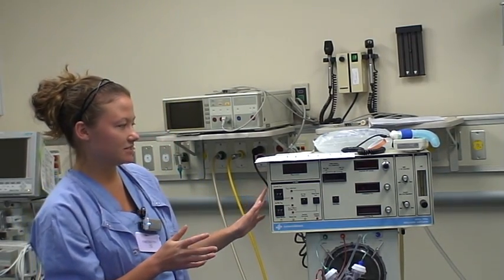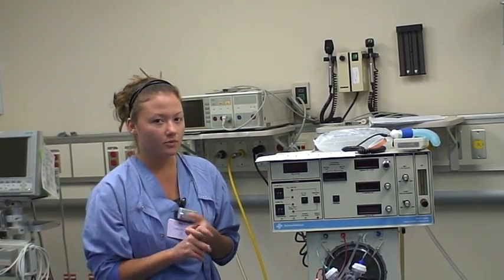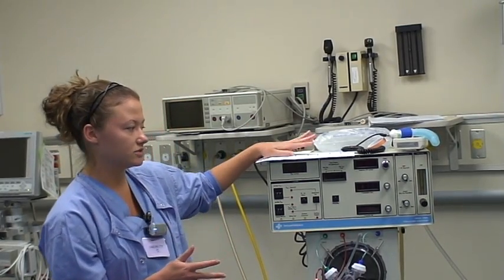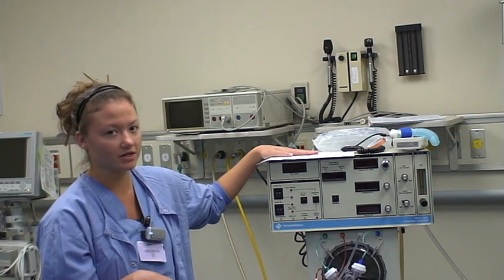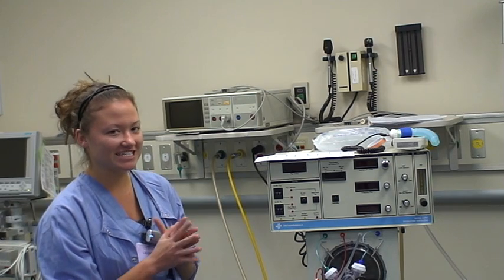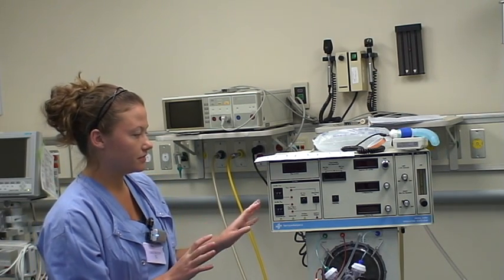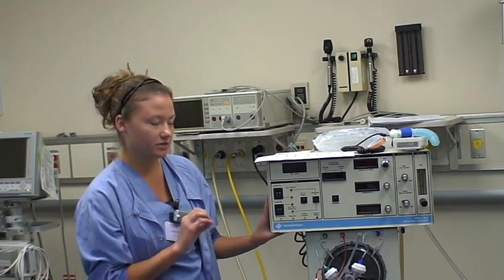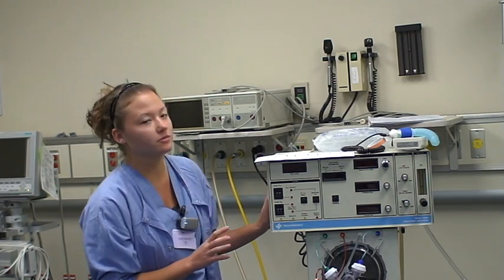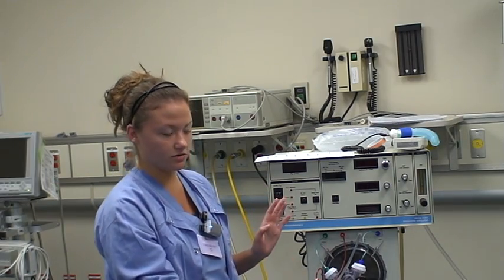There are a few differences between the oscillator and a regular conventional ventilator. One big difference is that the oscillator uses over 150 breaths per minute, whereas the conventional ventilator usually uses a rate of 40 to 60 breaths per minute on infants. The other important difference is that the tidal volume delivered by the oscillator is a lot smaller than the dead space it has to go through.